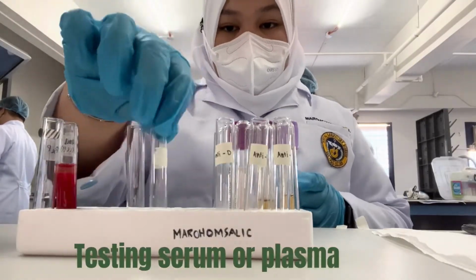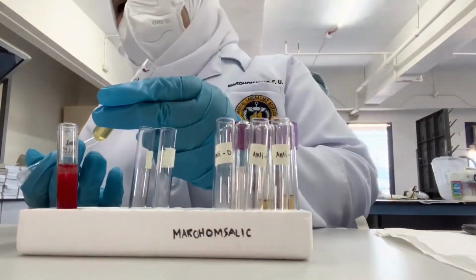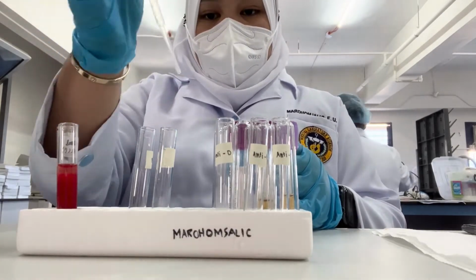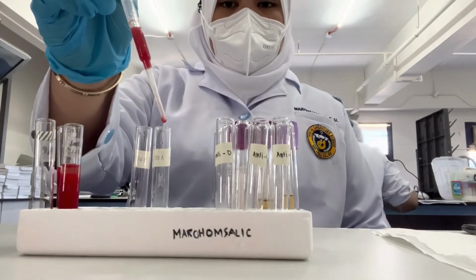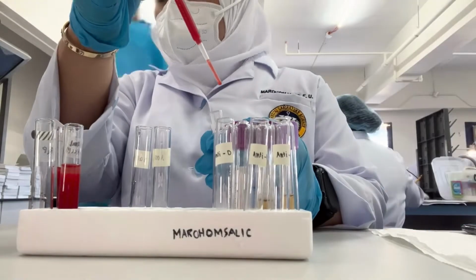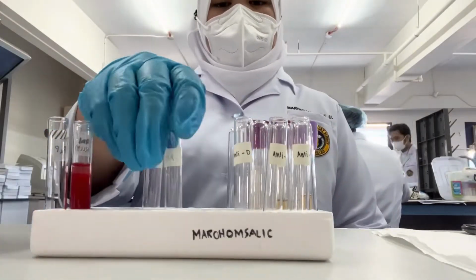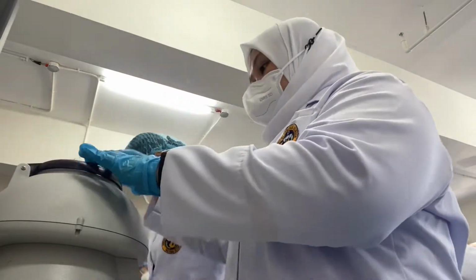Second part is testing serum or plasma. Label 2 tubes with A and B. Step 1, add 2 drops of plasma to the labeled tubes. Step 2, add 1 drop of A reagent red cell to the tube labeled A. Step 3, add 1 drop of B reagent red cells to the tube labeled B. Step 4, gently mix the contents of the tubes, then centrifuge for 15 seconds at 3,400 RPM.